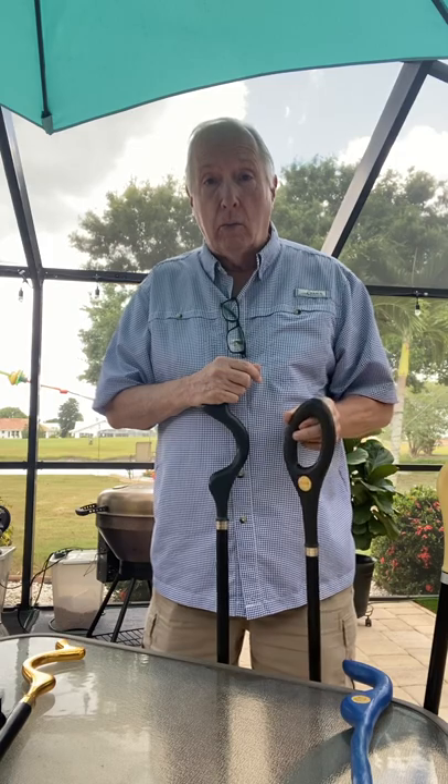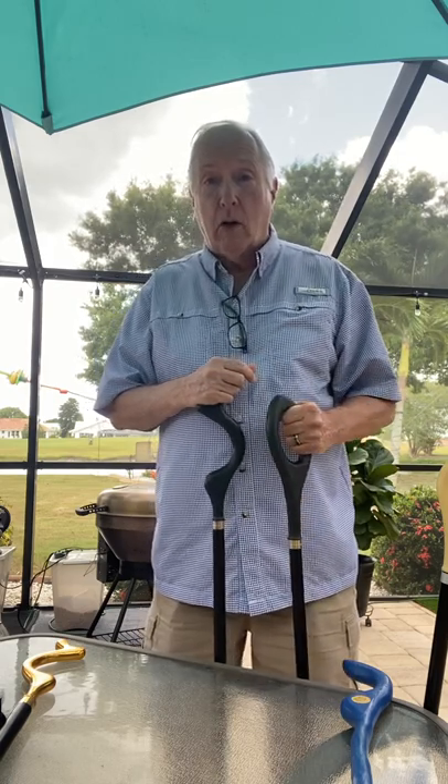Guys along the way — like Dr. Brett Sear who did a blog on about.com — had suggestions that were very helpful. The posture cane is now available. Walgreens has it, and Top Dog Direct is the licensee working through Amazon. Walgreens has a sale right now at $29.95. We've sold well over a hundred thousand and a lot of people are very happy. There are new changes coming — possibly a year or two out — including a whole new model called the D handle.